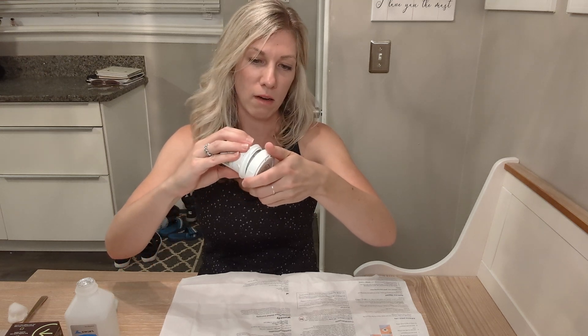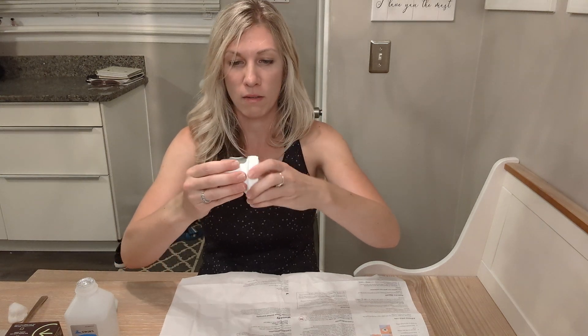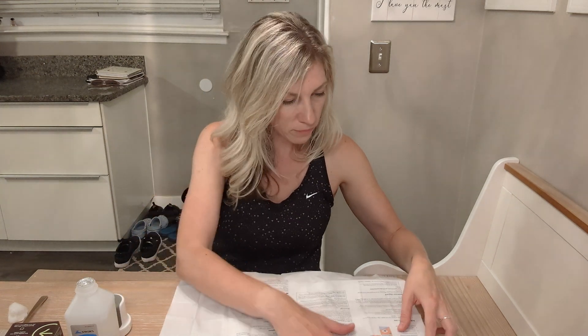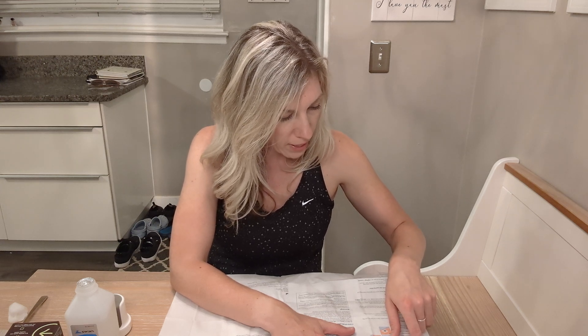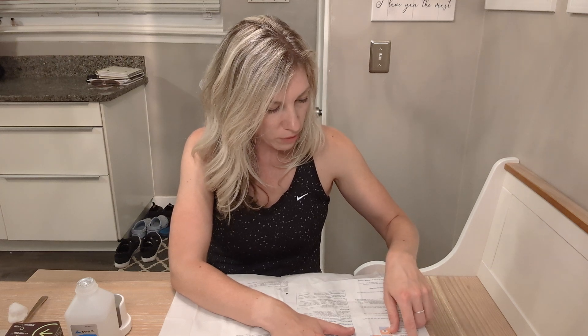I'm not going to lie, I was a little nervous — like, how can this not hurt? I didn't feel a thing. We need to save that top so we can pair to our Stello app later. Then rub the patch to help keep it on your skin — rub firmly around the patch three times. The patch is on there. One, two, three. How cool — I didn't even feel it. It's amazing.